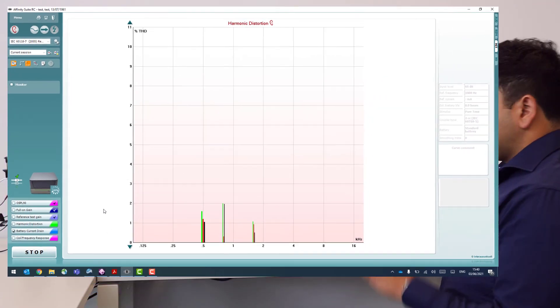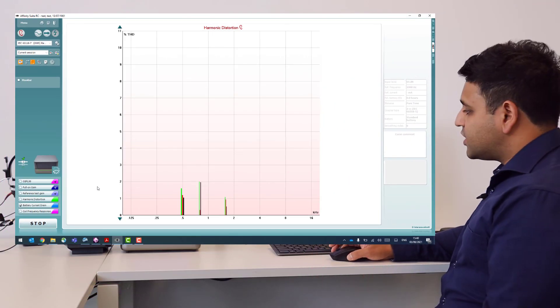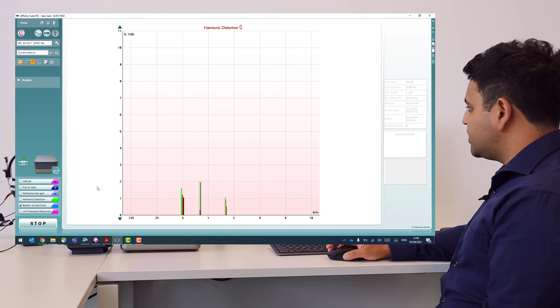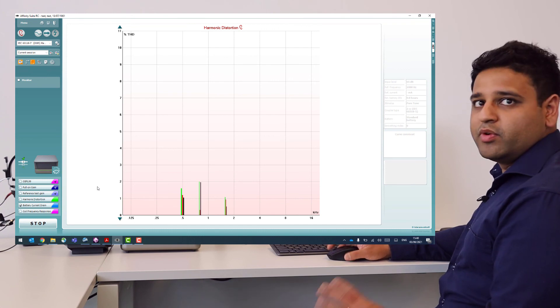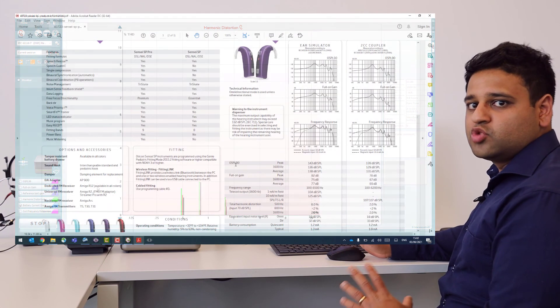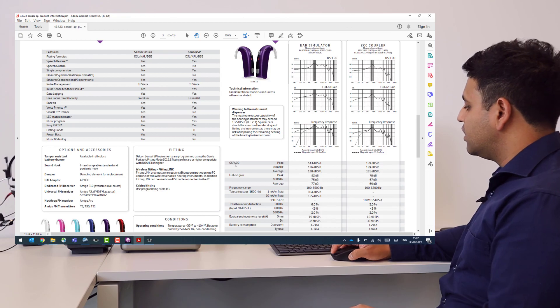That's the test complete. Now that we have this data, we can go to our spec sheet again and compare what we've seen as the output of the device to what the manufacturer recommends on the spec sheet according to the test settings.